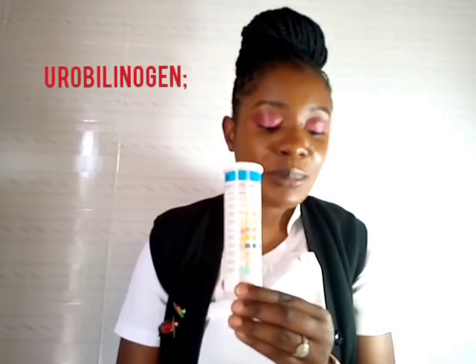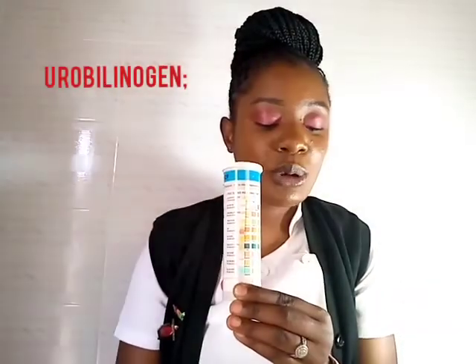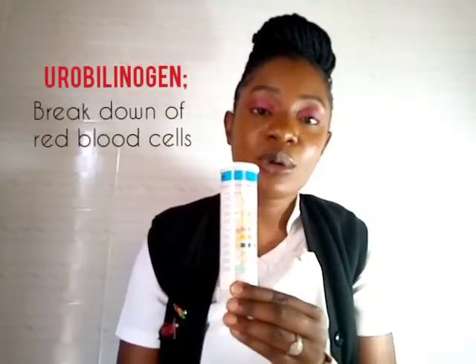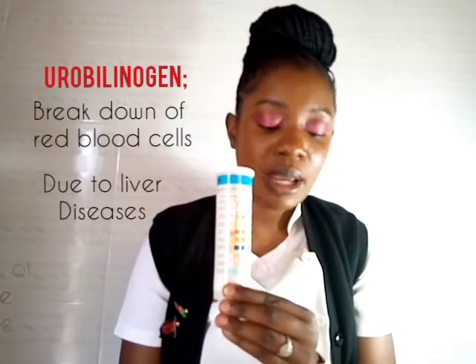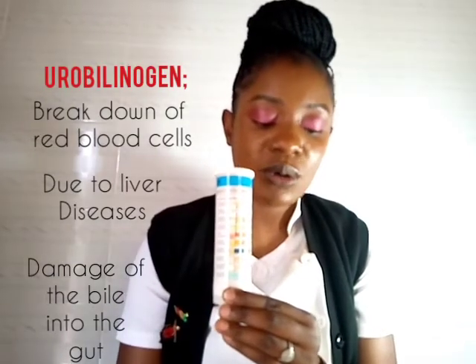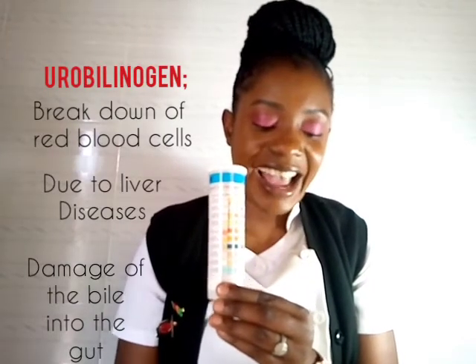Presence of urobilinogen — which you check after 60 seconds — indicates the breakdown of red blood cells. This may be due to liver disease or damage to the bile drainage into the gut, such as gallstones. So presence of urobilinogen indicates liver disease or damage of the bile duct, resulting in breakdown of red blood cells.